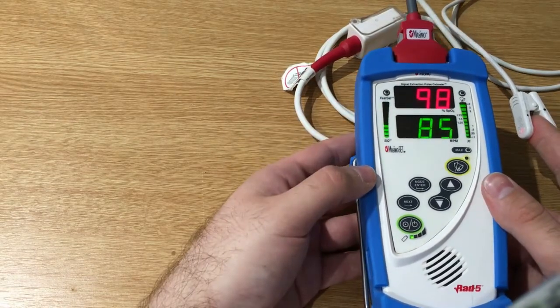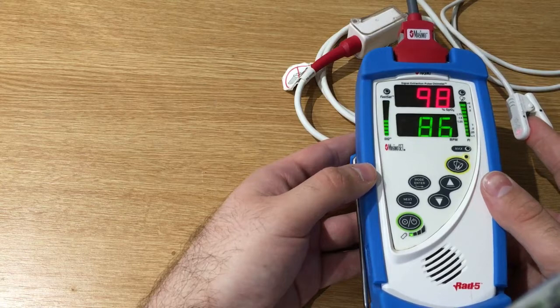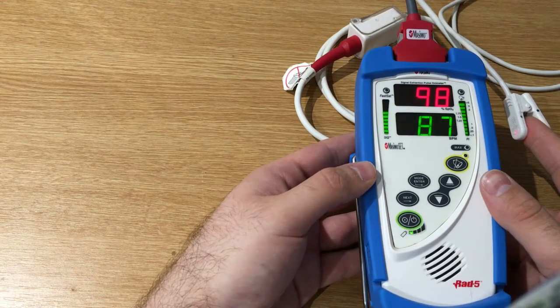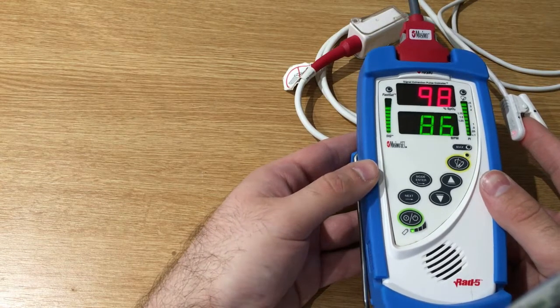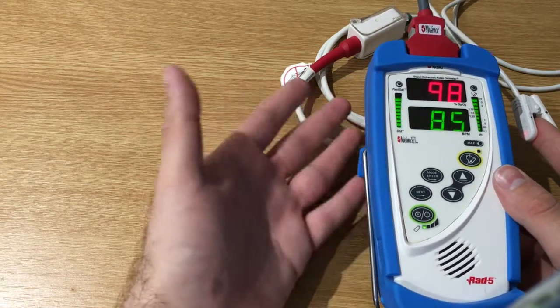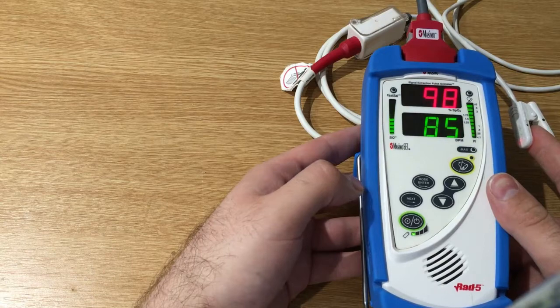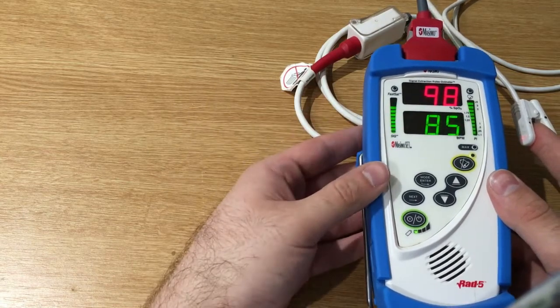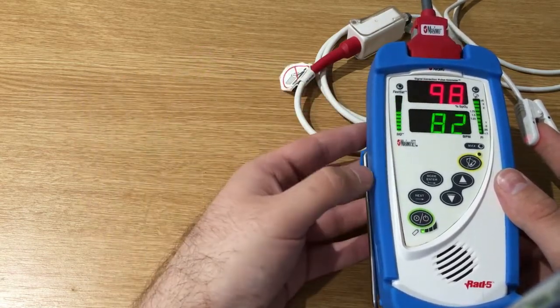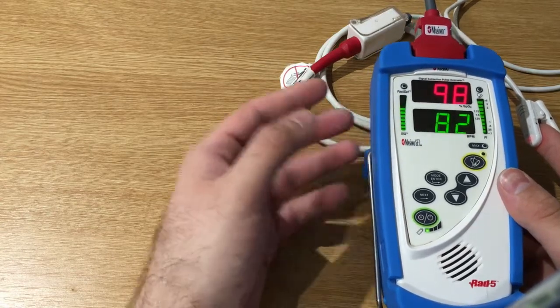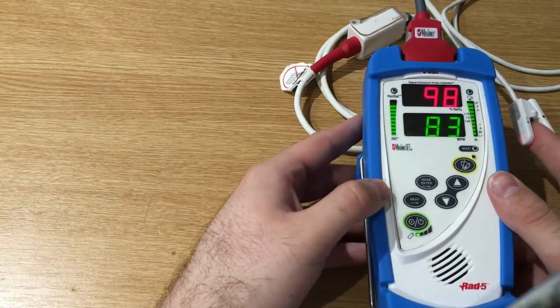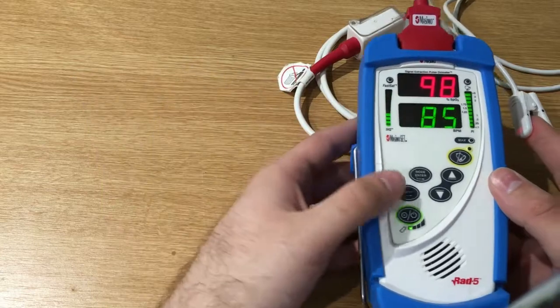So the majority of pulse oximeters emit a tone just when they recognize a clean pulse signal, whereas this pulse oximeter gives a variable pitch tone instead of having a loss of signal.